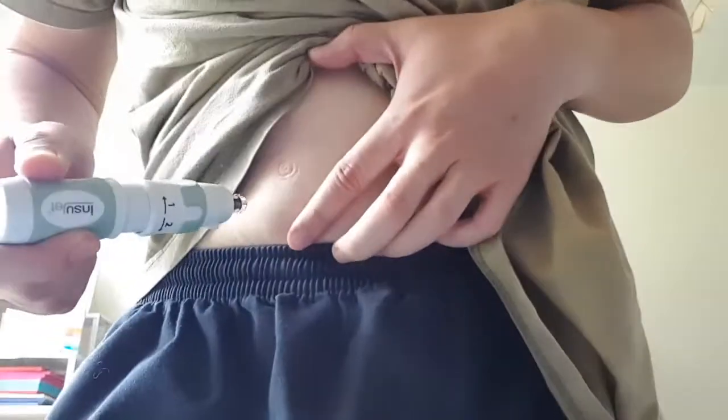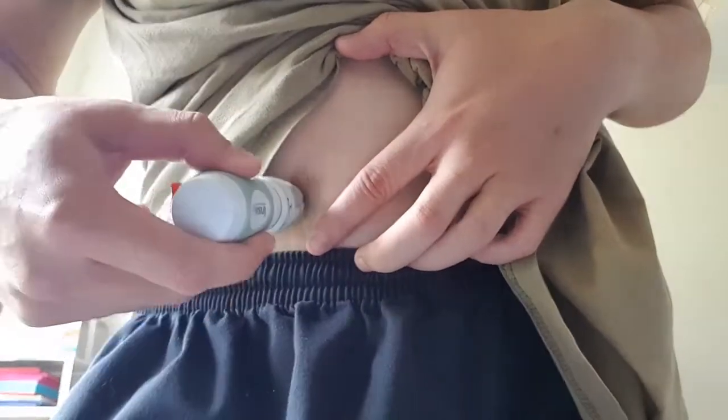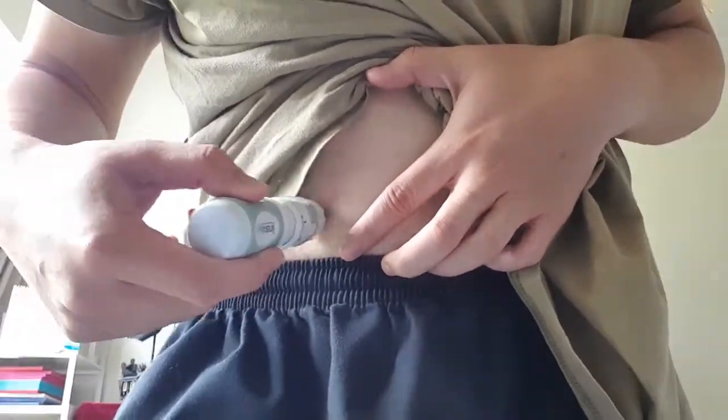What I think is probably when you inject, it's shifted side to side, so do go in straight. Also, I'd like to check whether you have any existing dermatological skin issue like bruising easily. Because some user feedback — a small percentage, like on the UK side — they have the same situation as well. So keep me posted. I'll send you this video.